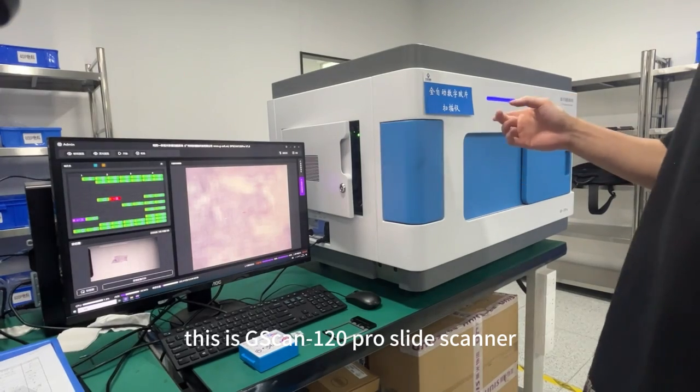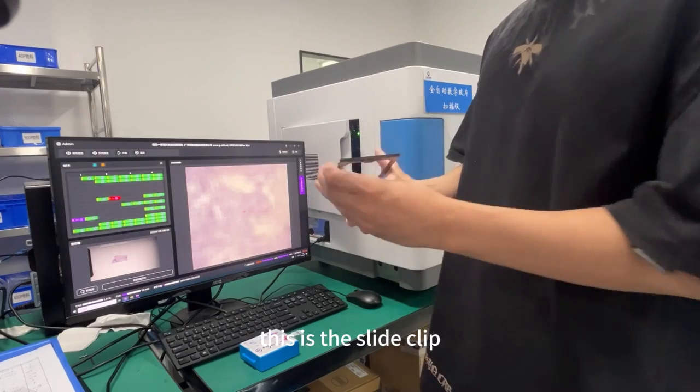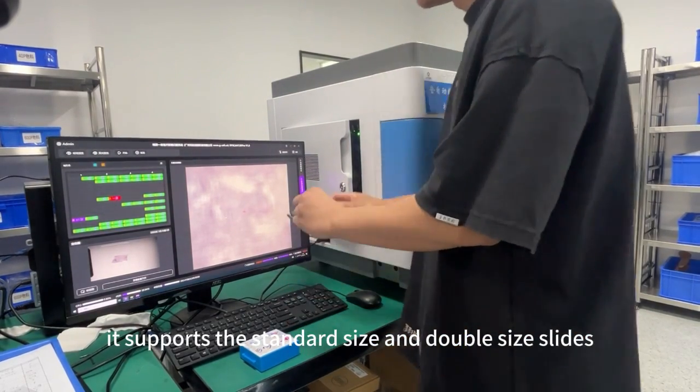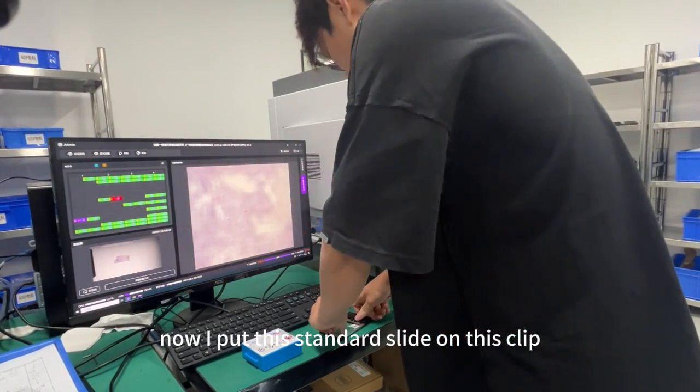This is GScan-120 Pro Slide Scanner. This is the slide clip. It supports the standard size and the double size slides. Now I put this standard slide on this clip.